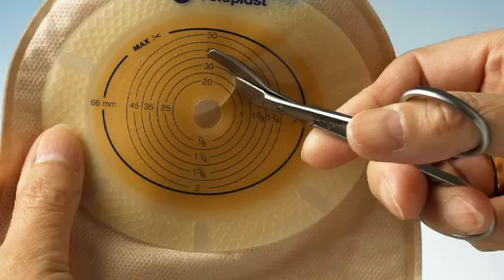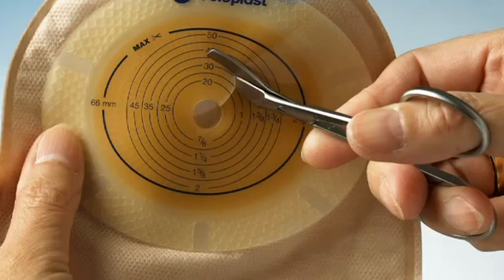The diameter of the stoma will change over time, so make sure you always keep a close eye on the size of your stoma.